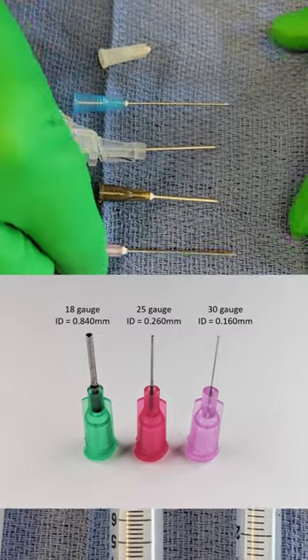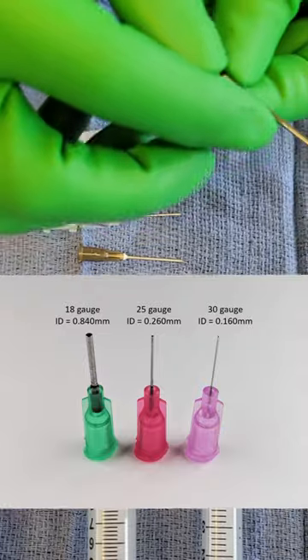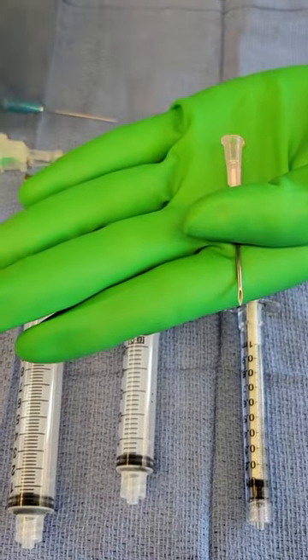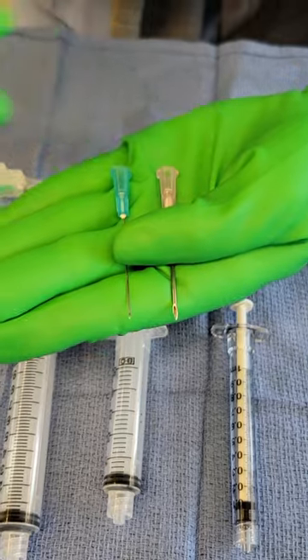When we say gauge, we're talking about the diameter of the needle. This here is an 18-gauge needle, whereas this is a 25-gauge needle.